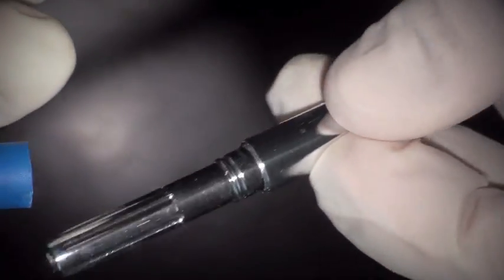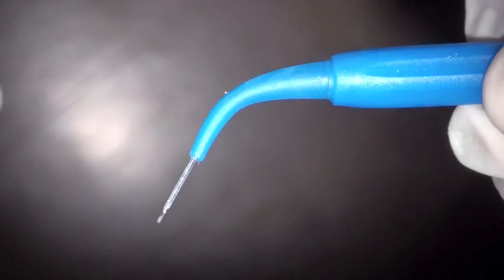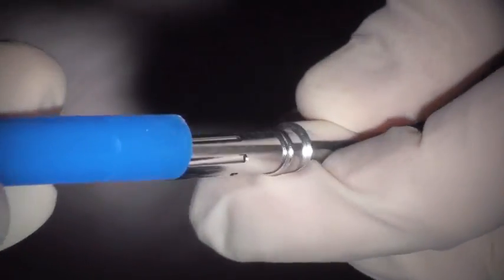So here is the new handpiece with disposable tips, 60 degrees, and it's got a little magnetic clip. This clips on and you can change the angle a little bit, but it doesn't matter which angle you put it on — it just lays right down. One of the nice things: there is the tip and if you look you can see the aiming beam. Very nice.